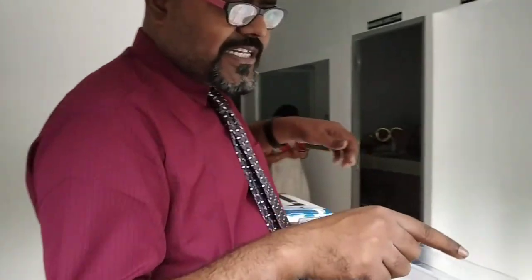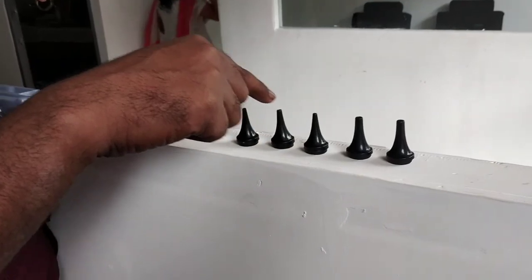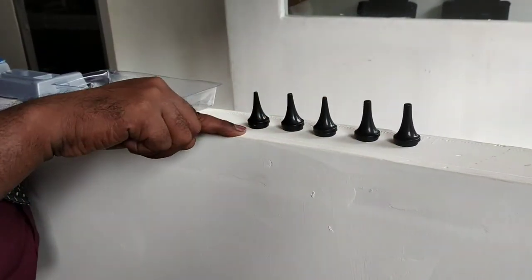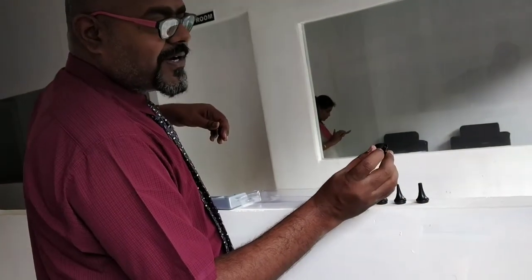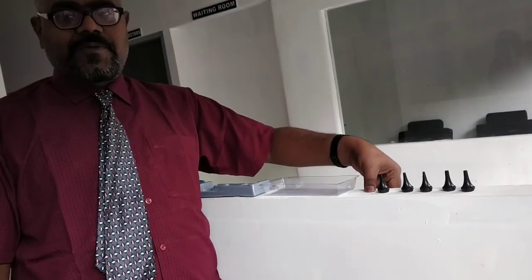Please remember the term speculum is a very important terminology. Through that, you just see the dimension of the opening of this canal. The diameter of this is entirely different. The size of the speculum is almost the same, but the diameter in the edge part is entirely different. Each one has a different diameter at the end part. According to that only the light will be illuminated over the internal parts. Okay, so this is the small description of this otoscope.